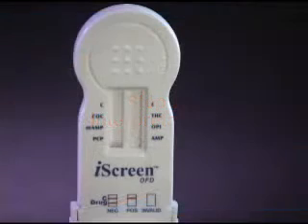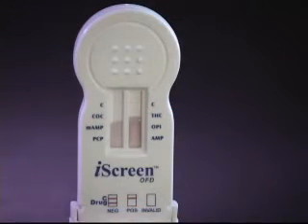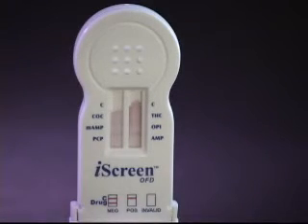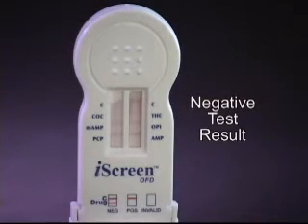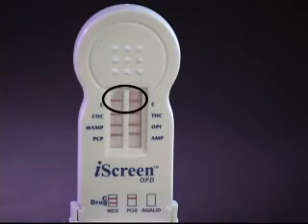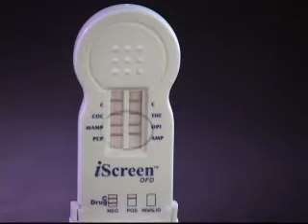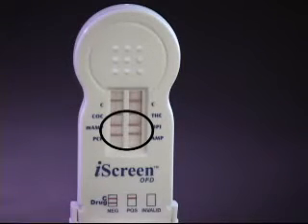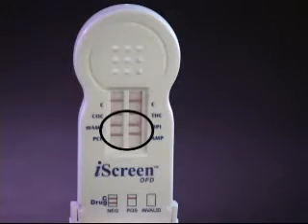Step 2: Interpretation. The test results are interpreted by viewing the lines in the test results windows. Negative results may be interpreted as soon as all lines are visible. Non-negative results should only be interpreted at 10 minutes. Here is an example of a negative iScreen OFD result. Notice the lines next to the C or control area in both result windows. This indicates that the test is valid and working properly. You will also see that there are lines next to the drug abbreviations.